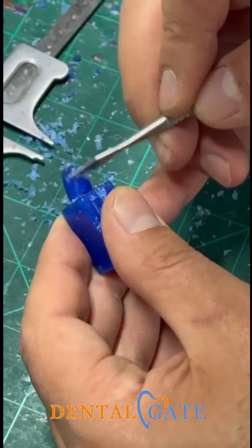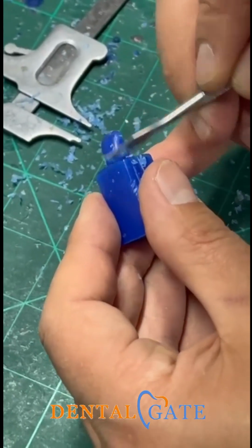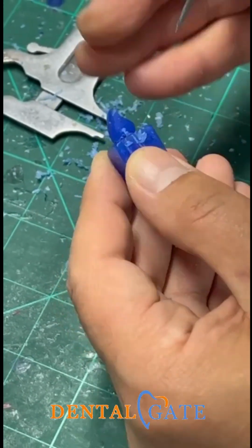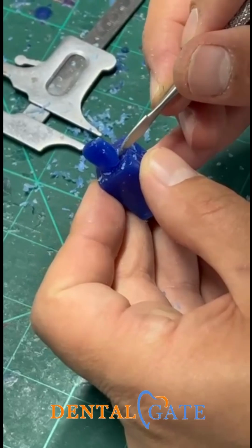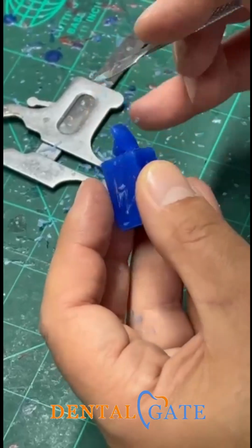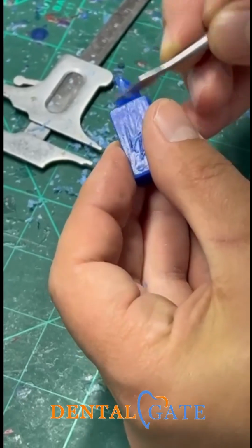So I can see the roundation here, and I will make a roundation with the tapering in the lingual side. I will keep going to make a roundation that connects with the lingual aspect. Regarding the other side, I need to make another roundation here. It will be appropriate with the lingual aspect because we had angle lines here.